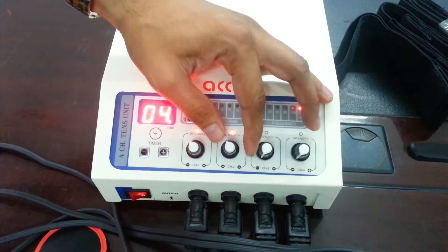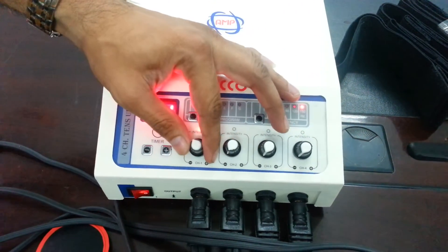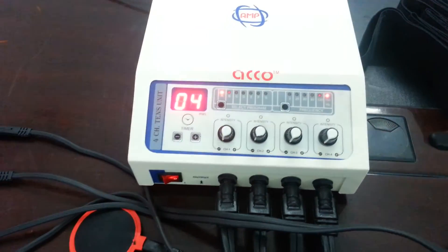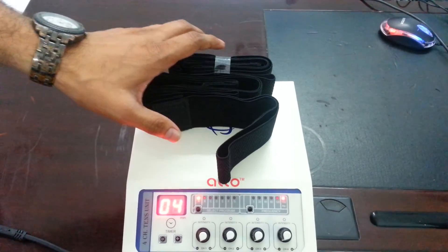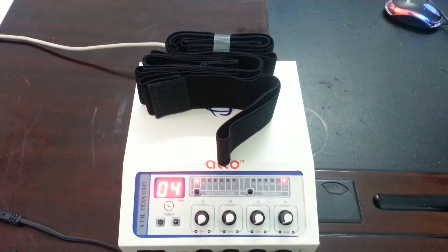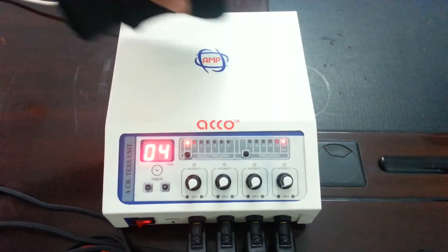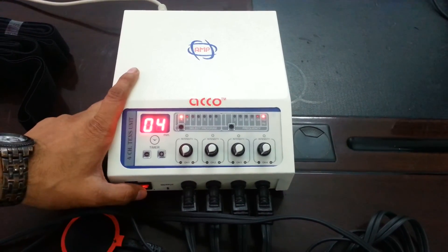Close intensity. These straps are used to bind pads with the body. Demo completed.